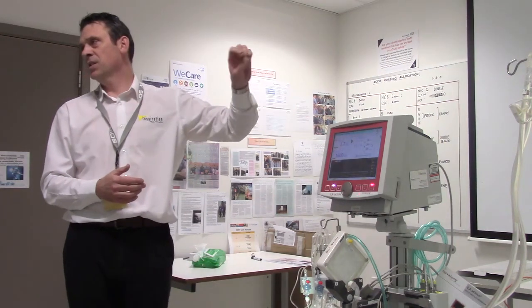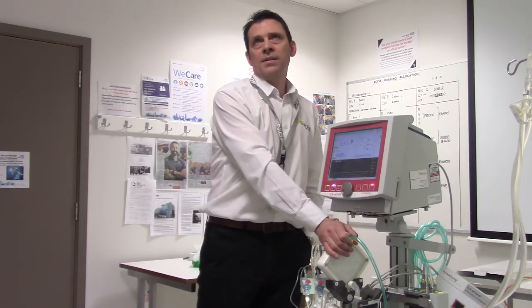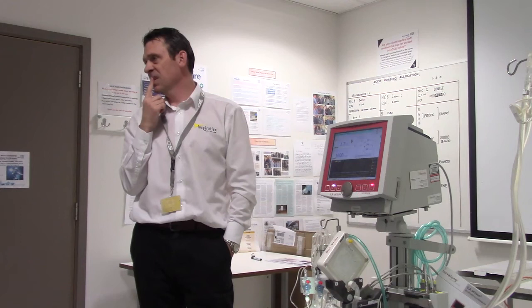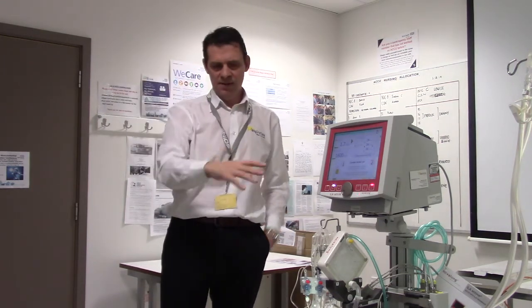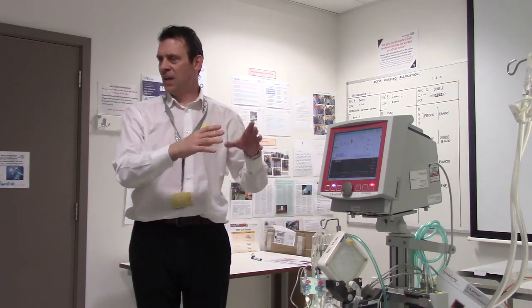What's the maximum pump speed on a 22 French? It all depends on your P1 — you can go as fast as you want on pump speed; it's the P1 pressure that limits you. Your highest blood flow on a 22 French will be about one and a half litres, not much more, depending on how well-filled the patient is and whether the cannula is in the IVC from femoral or from the right internal jugular. The capacity of this lung is four and a half litres, but at very high blood flows you have less contact time, and the benefit curve drops — the next lung up is bigger with a greater surface area. We're primarily looking for CO2 clearance, and that's where the benefit comes from.